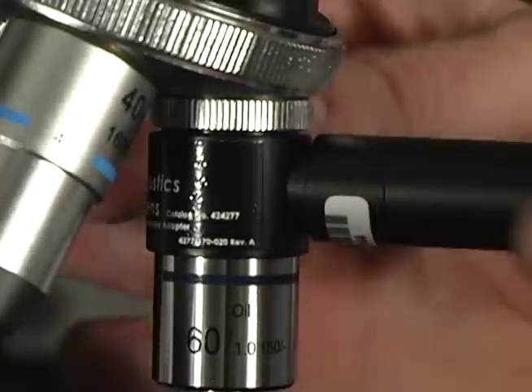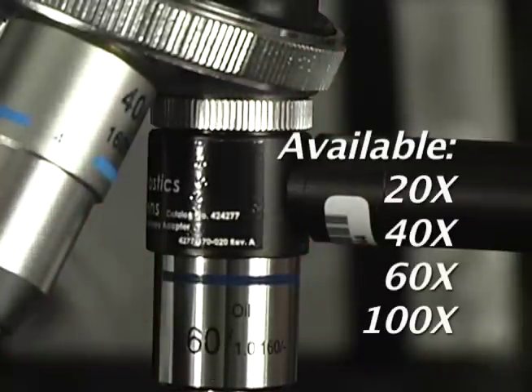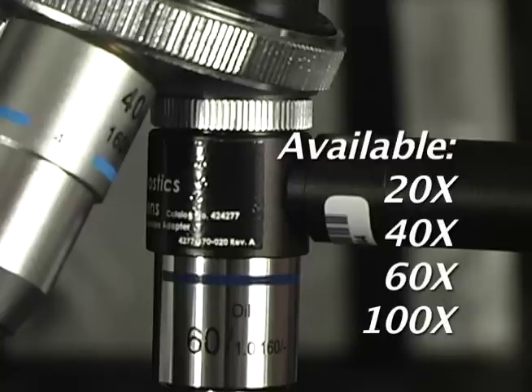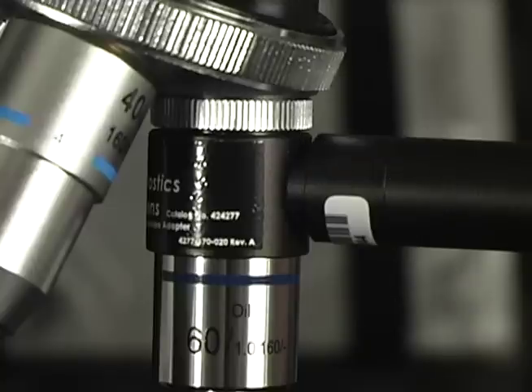The objective lens is available in 20, 40, 60, and 100 times magnification. For microscopes which do not include RMS threading, adapter rings are available.